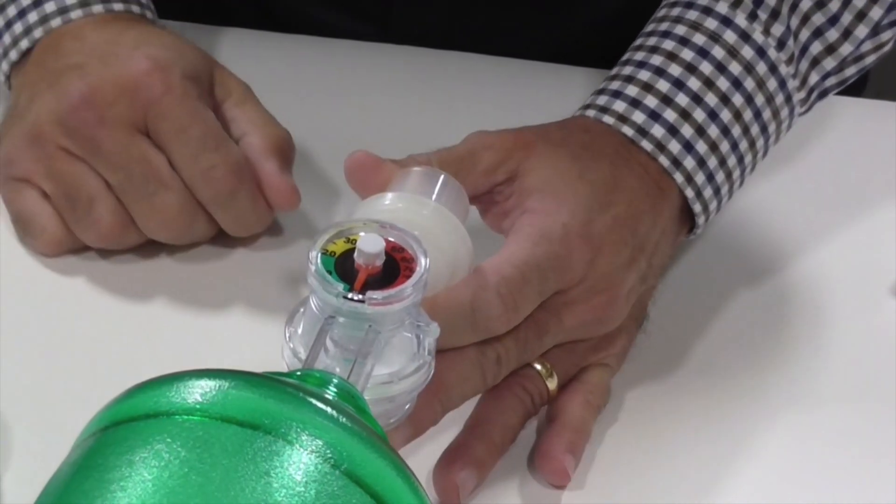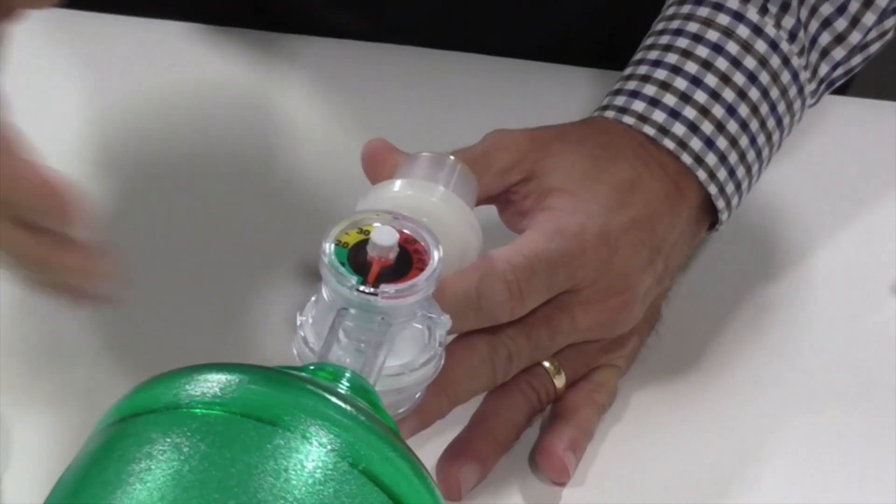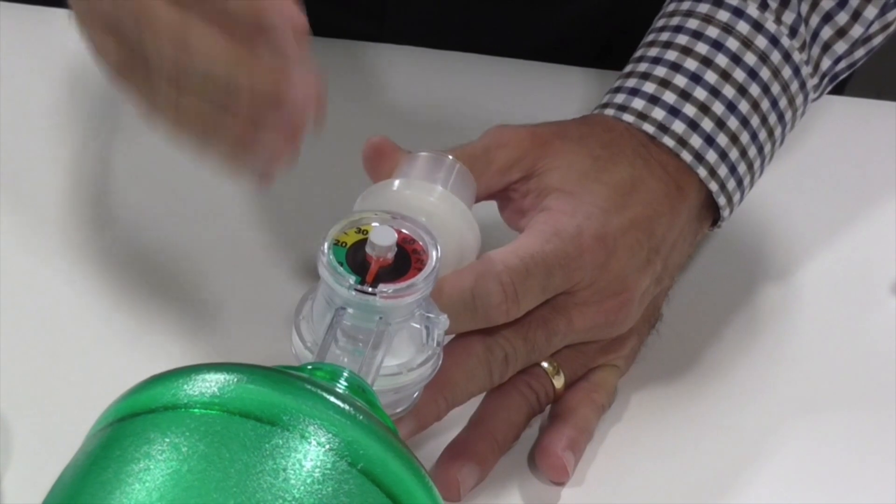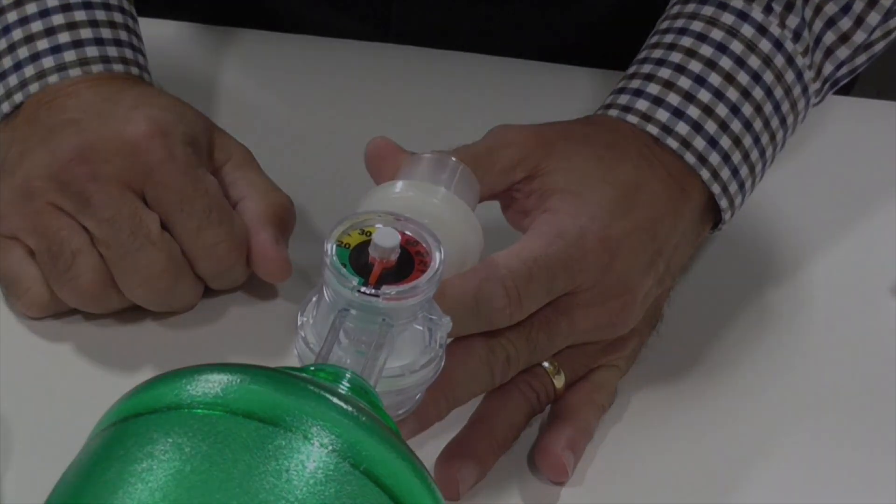It will also tell me if something's wrong. If I'm not registering any pressure on the bag with the manual ventilator, it's another way of alerting me that something may be wrong with your manual ventilator.